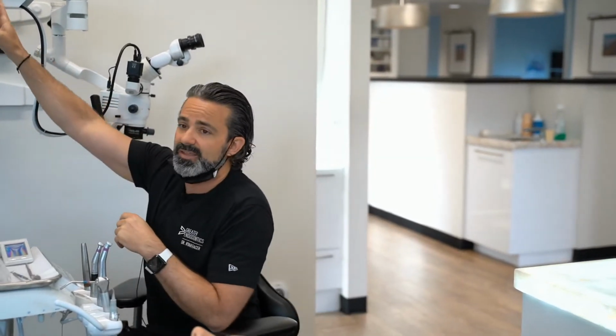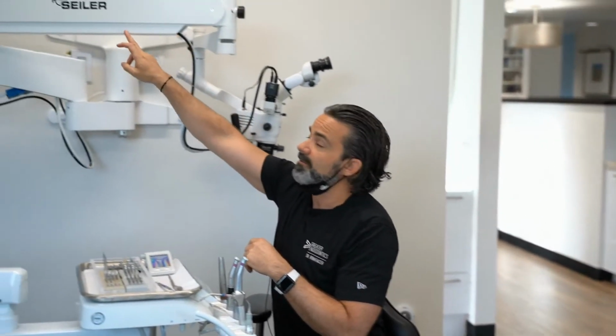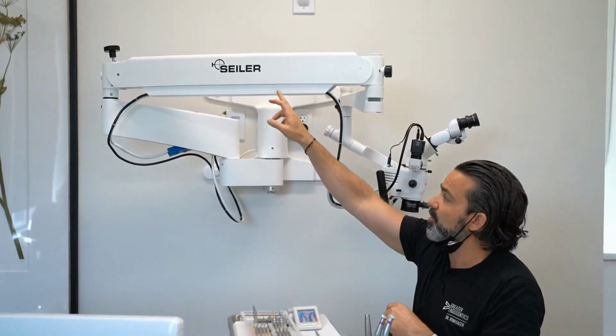What I think is the most important thing is your ergonomics in the room. Your room's not going to grow new walls, and I doubt you're going to want to reconstruct something in an office. So if you want to put a microscope in, the configurations that they offer is definitely a swinging decision between brands of microscopes. The selling points for me going with Seiler are as follows. One is this boom length that I talked about right here. This was very important to me.